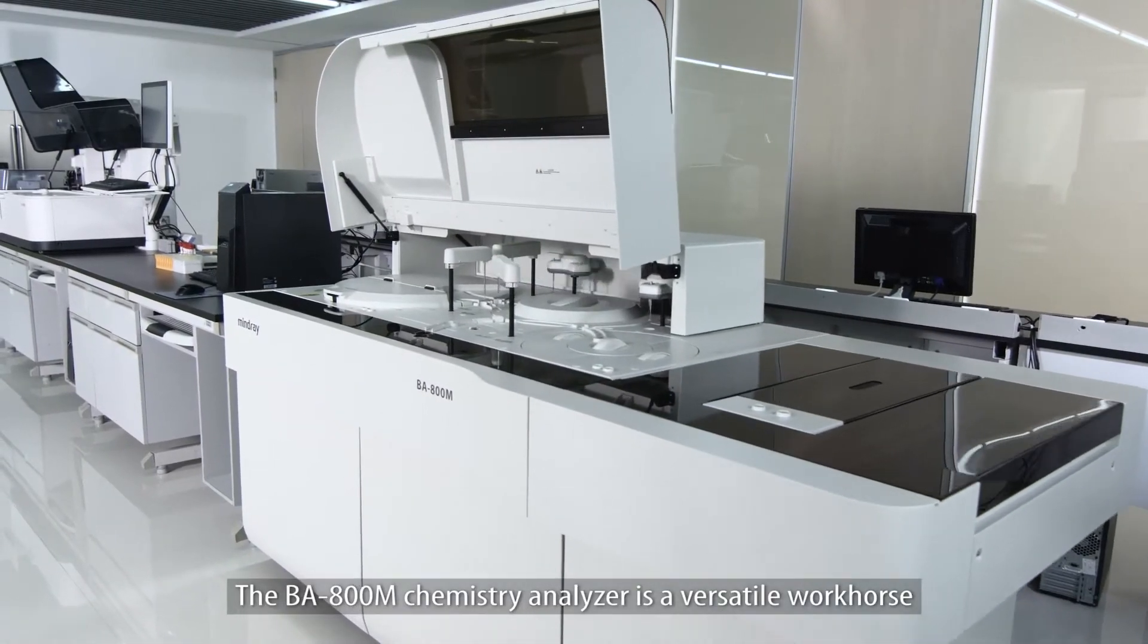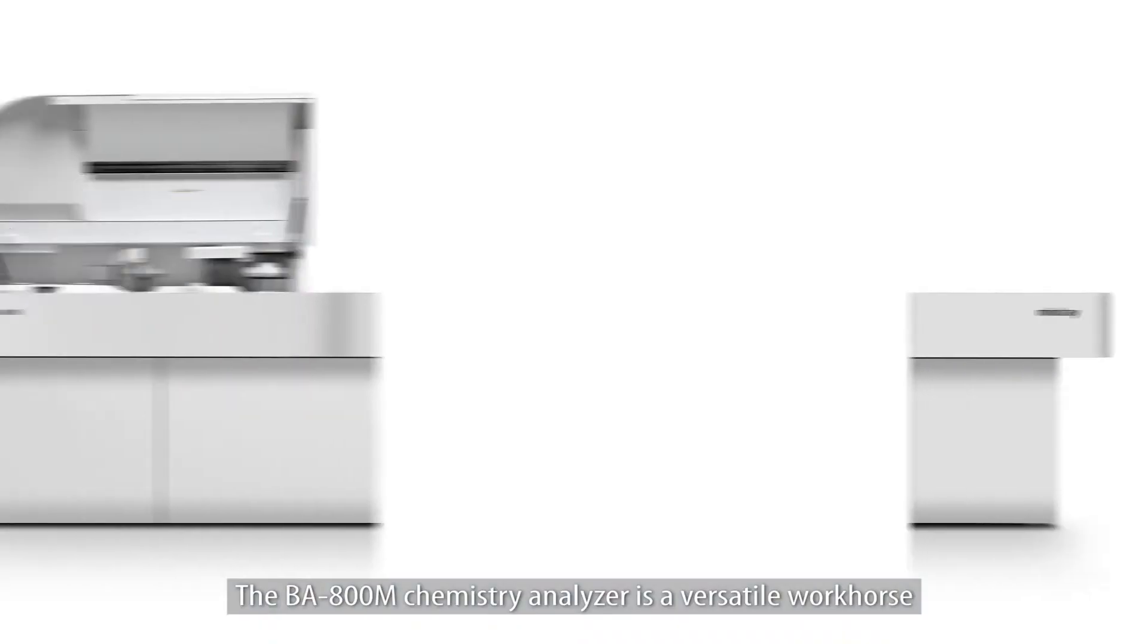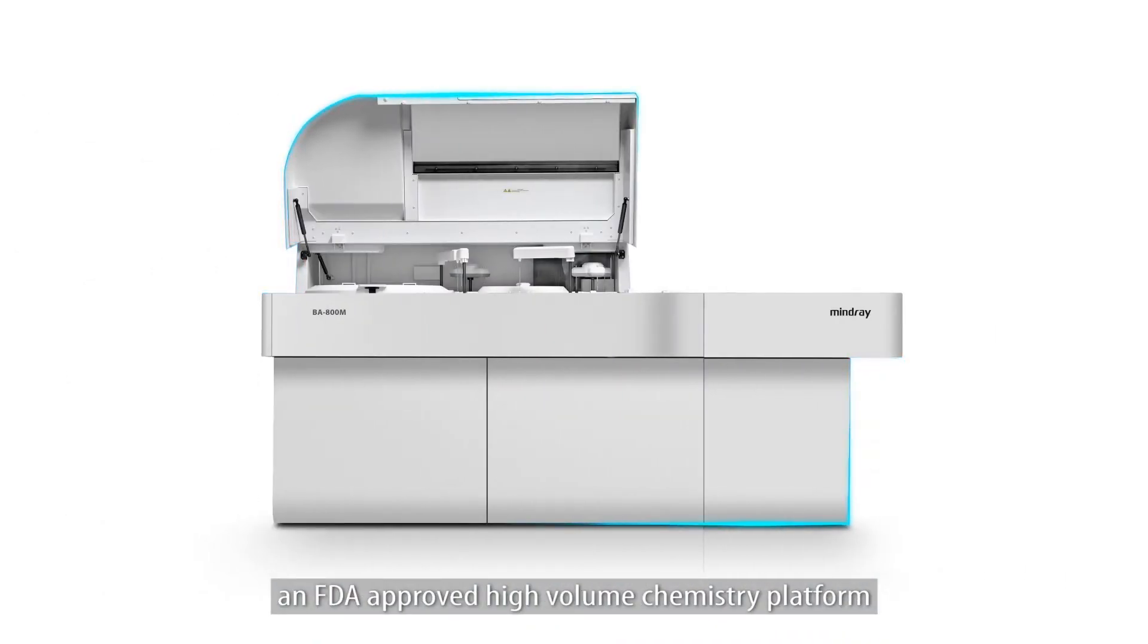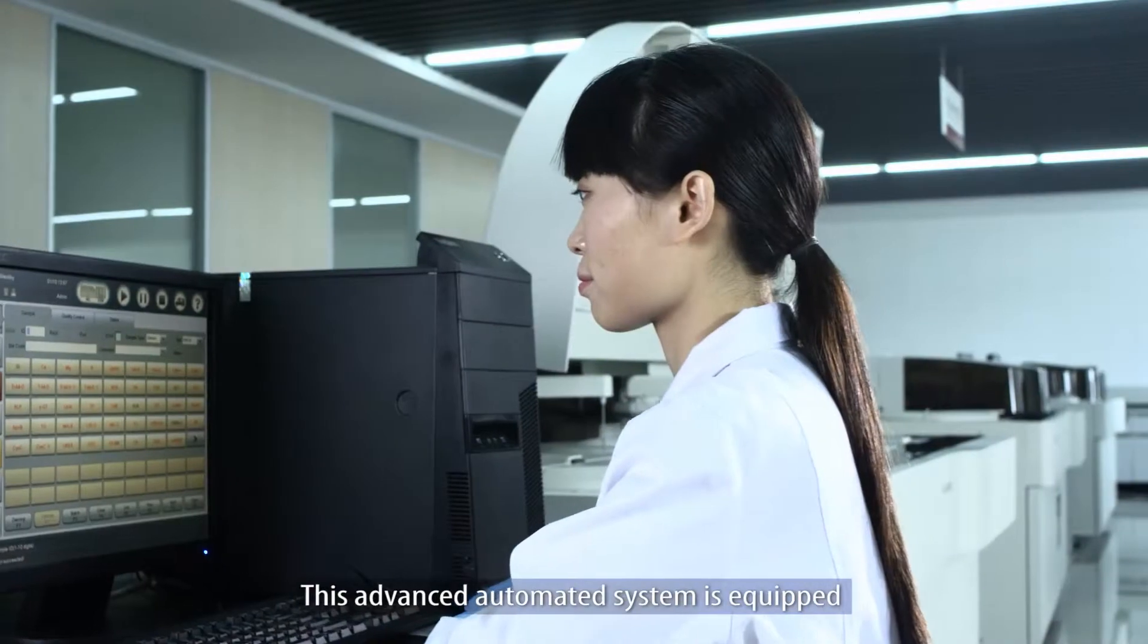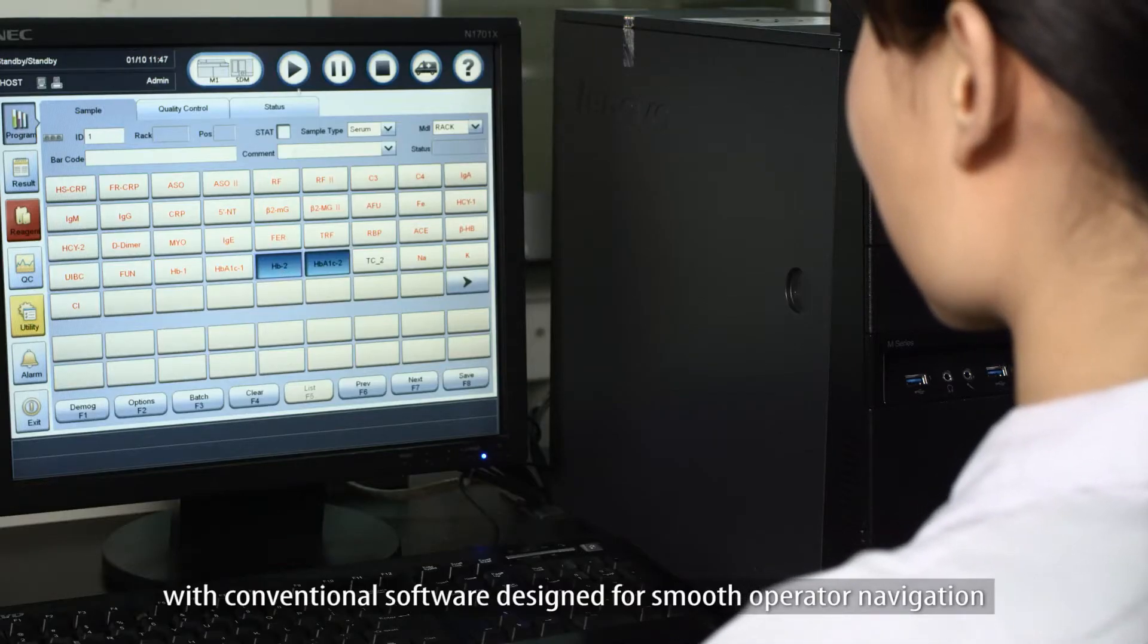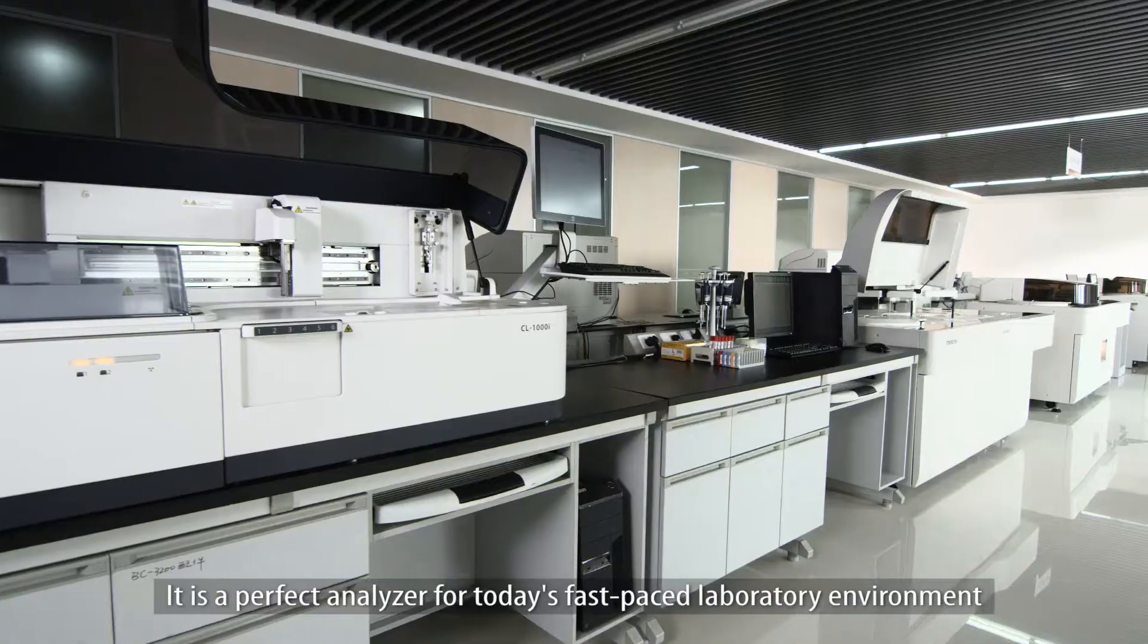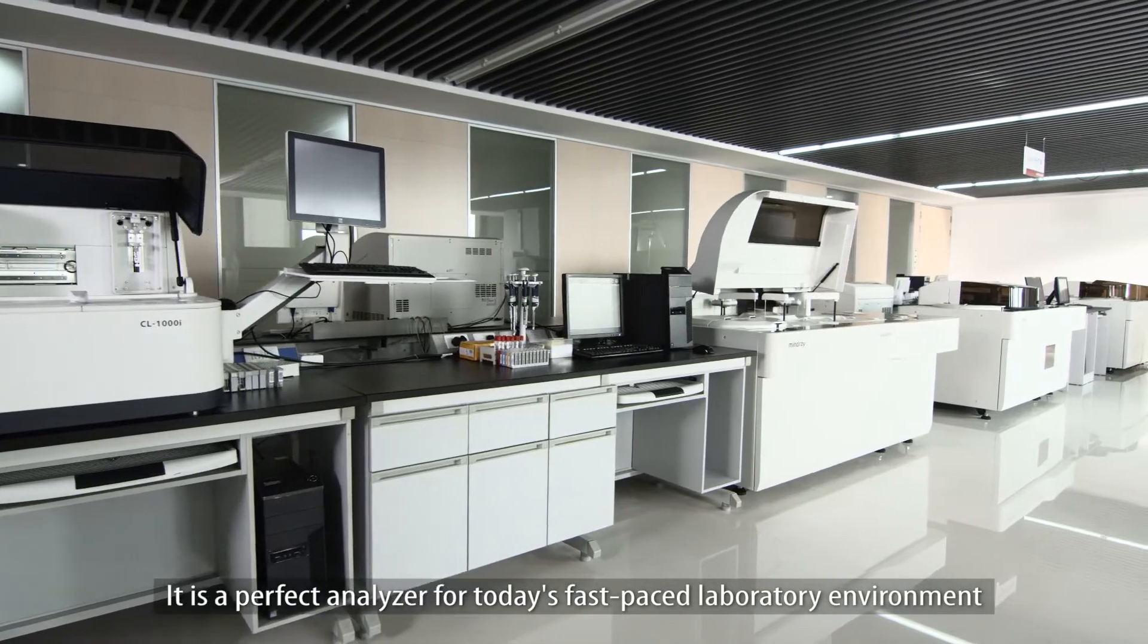The BA800M Chemistry Analyzer is a versatile workhorse, an FDA-approved high-volume chemistry platform with a built-in sample delivery management SDM module. This advanced automated system is equipped with conventional software designed for smooth operator navigation. It is a perfect analyzer for today's fast-paced laboratory environment.